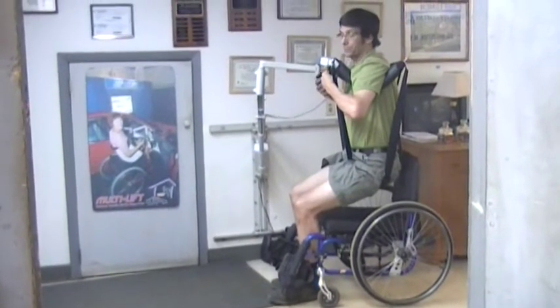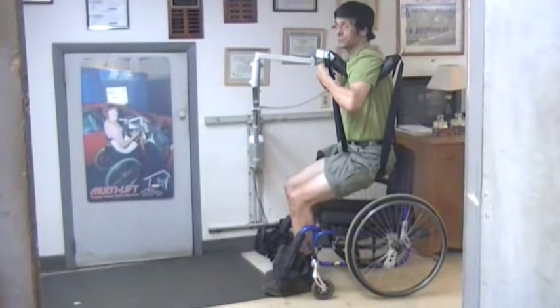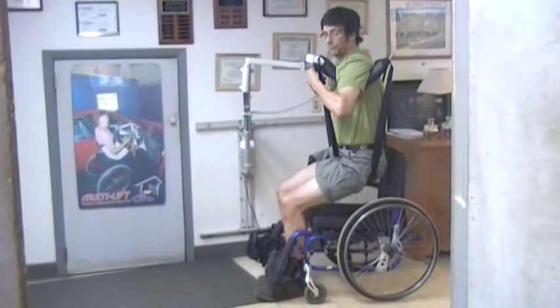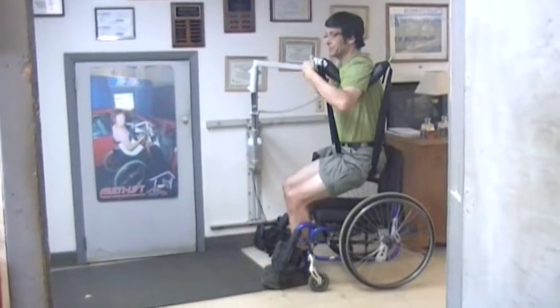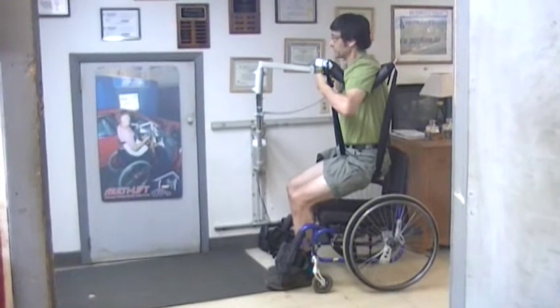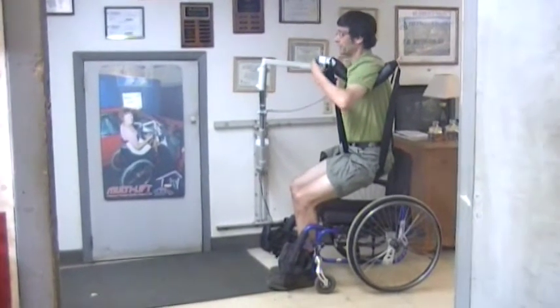The idea behind this product is for those who really wish to use their legs a little bit, or who are best supported from under the arms and have reasonably strong arms. The underarm supports are adjustable for the width of the user's chest and, of course, it's padded.